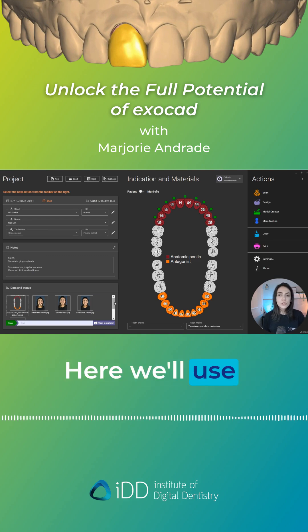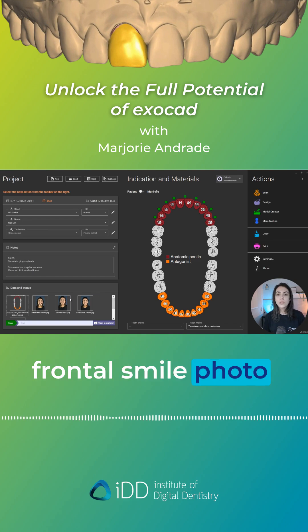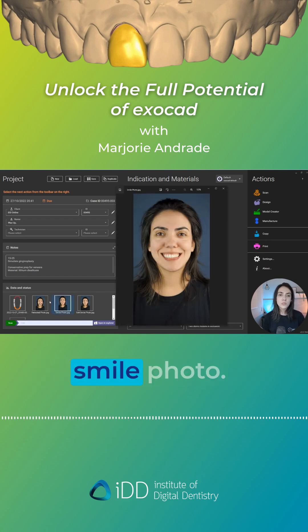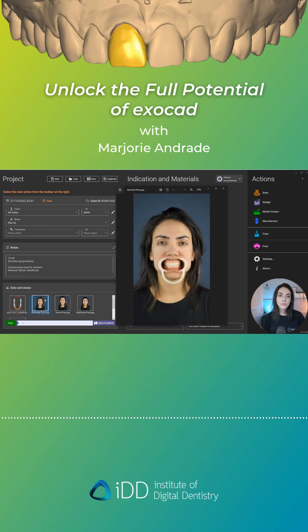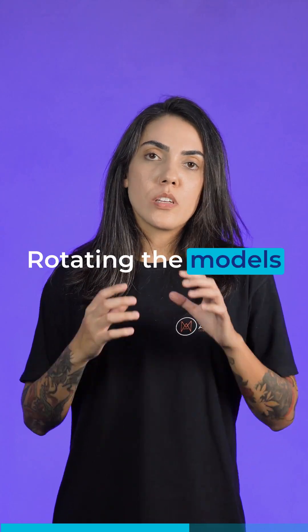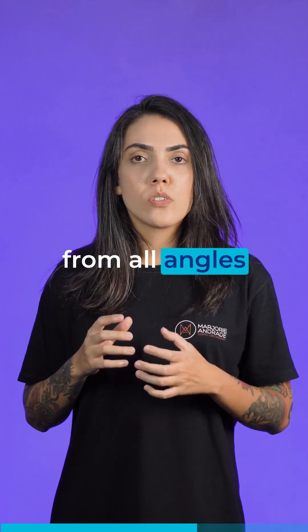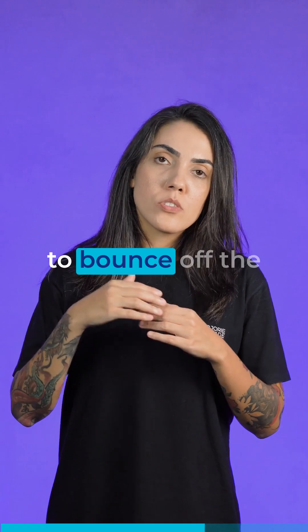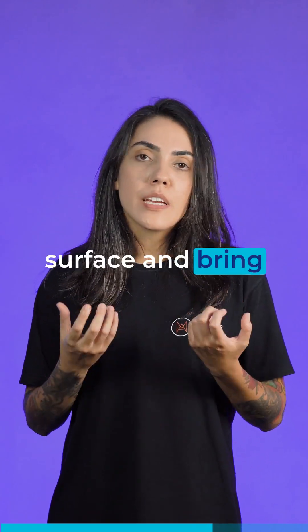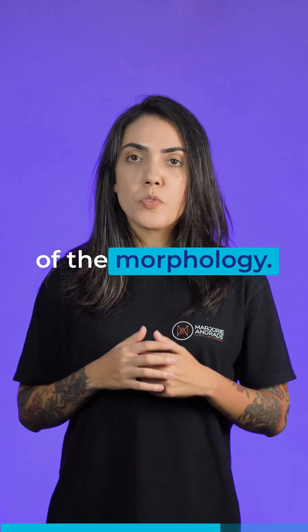Here we use two main photos: a frontal smile photo and a retracted smile photo. Rotating the models and looking at them from all angles causes the light to bounce off the surface and bring out all the details of the morphology.